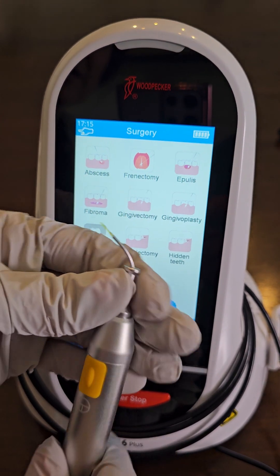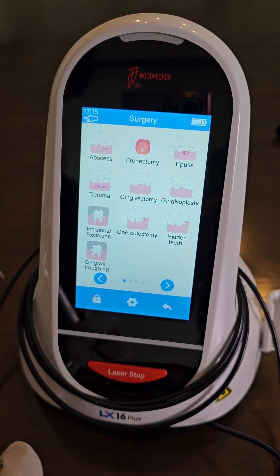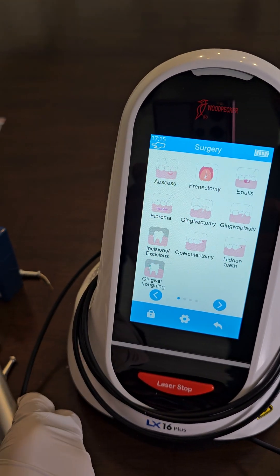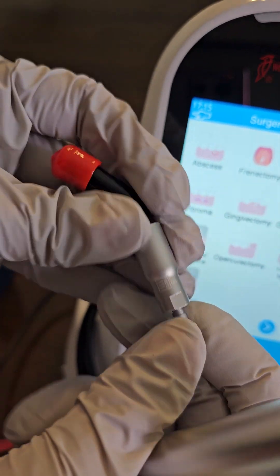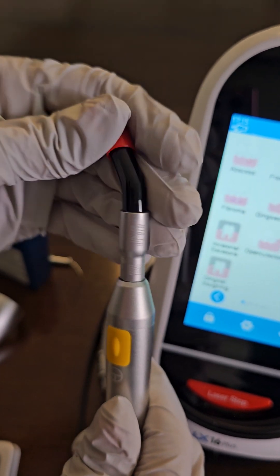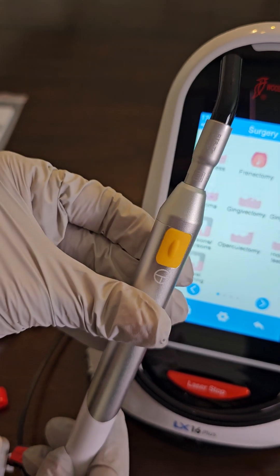If you wanted to insert one of the PBM adapter tips, same thing — it does come with multiple different tips. Make sure that you save the end caps on these. Screw that in, take the end cap off, make sure you save that, and then you're ready to go.